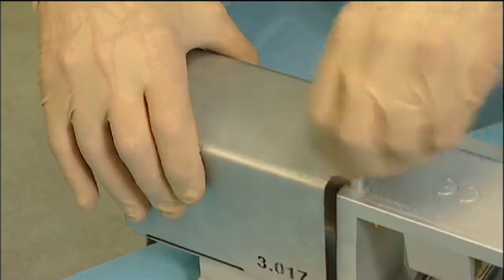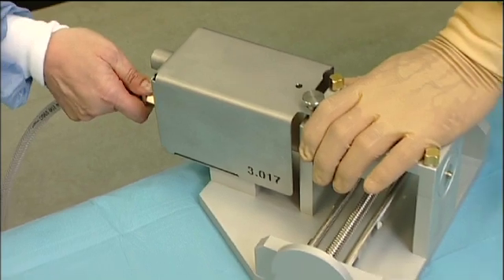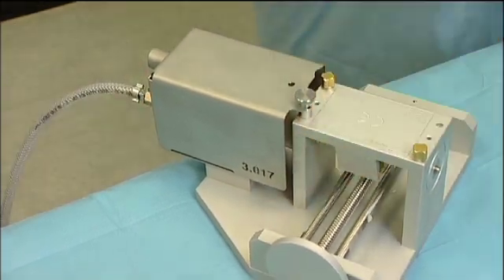After mounting the motor on the machine, it is secured by means of a screw and the air supply hose is again connected with the quick coupling.